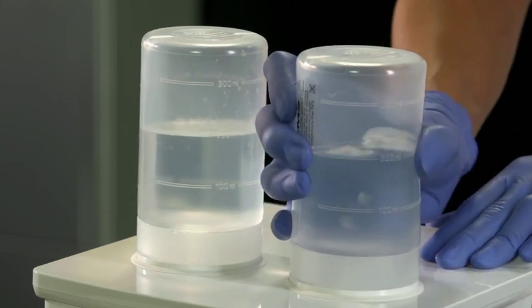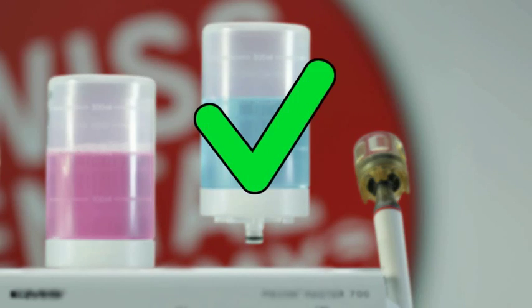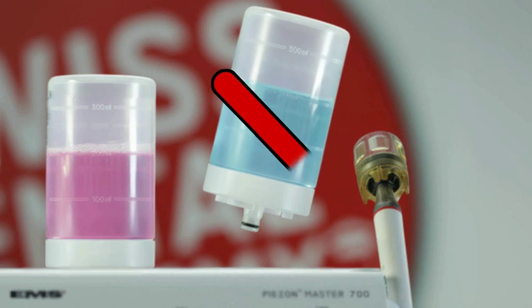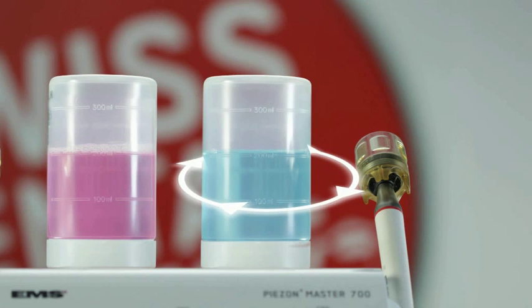During the exchange, take care to remove the bottles vertically, without tilting and without rotating them.